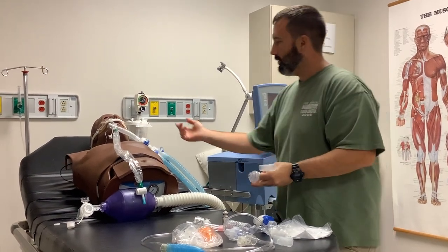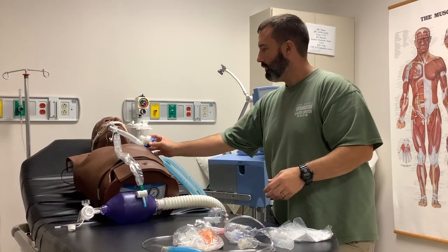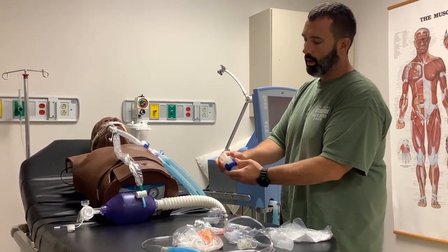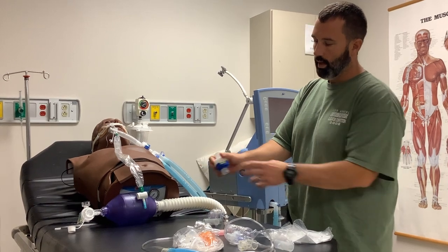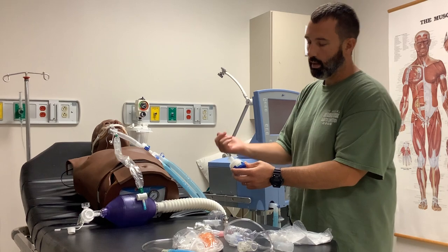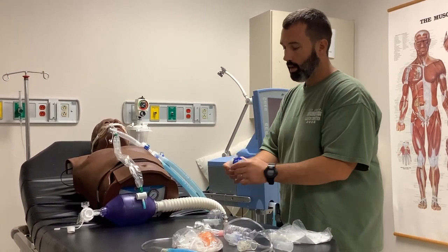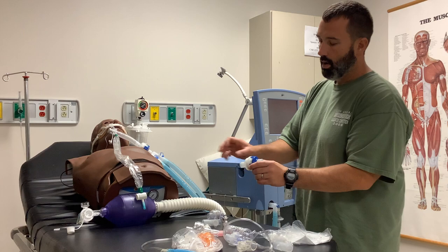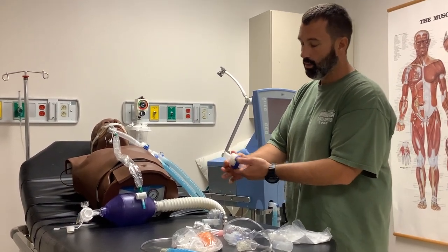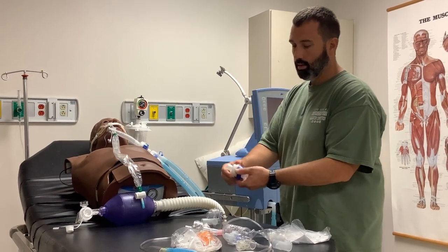The reason you might put it in after the HME is that this particular HME in line gives you the opportunity to transition back and forth between aerosol or leave it at your HME. Obviously, before you give the medication, you're going to make sure you've got that turned to aerosol so that it gives free passage of the medication through that particular HME device. Not all HMEs are made equally - this one has a rotary dial and you can switch between HME and aerosol.